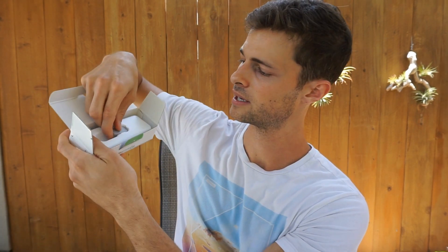And a discrete low profile wearable transmitter. From what I've read online, they say it's about 70% of the size, so it's a bit smaller and flatter. As we can see here, it's kind of rounded. Comparably it may seem bulky when you compare it to this — this is pretty flat looking. I'll pull it out for you guys. That is pretty flat. I'm liking the look of that. Dexcom G6. With the flatter design, it's less likely to catch on things like doors, or maybe people if you're giving hugs. A smaller size is obviously going to be greater for many purposes, including those who don't want to be seen with the Dexcom — they want to hide it under their clothing. It's less likely to be noticed through clothing because it's flatter.